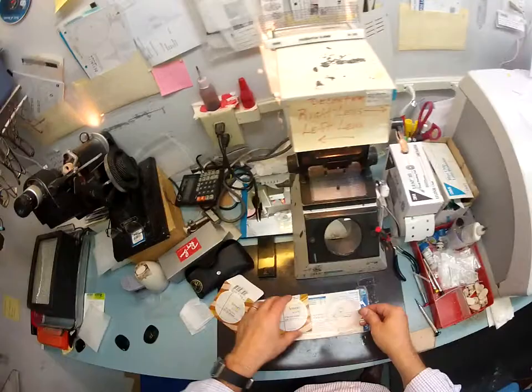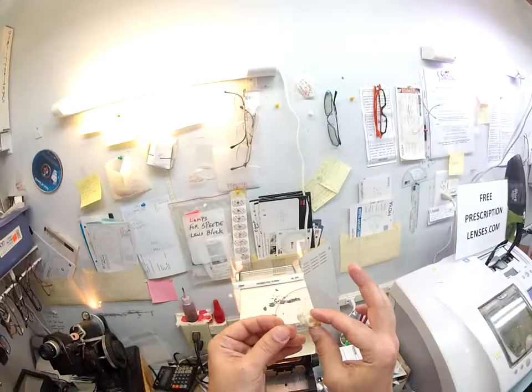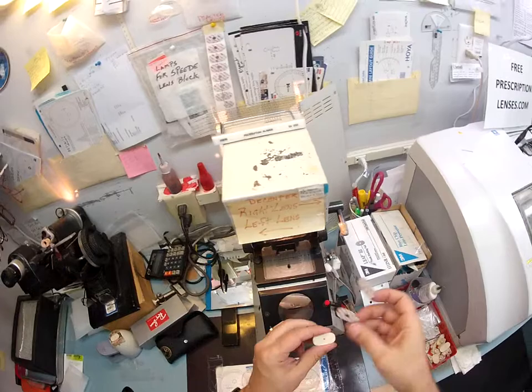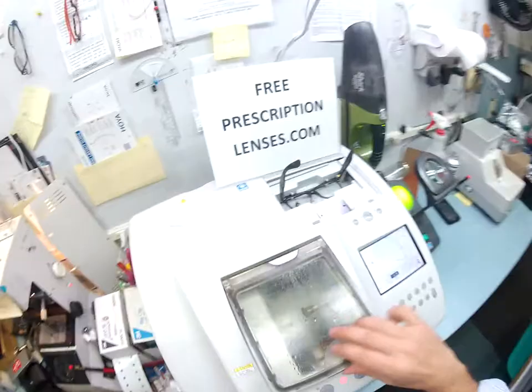But these are your lenses. Let me take them out of the protective packets. That green hue is the anti-glare coating. Now I need to put a block on here which holds it into place in the lathe while it is cutting, so I'm going to use my little 3M pads for that. The black side is the sticky side — I'm going to put it on there, pull the paper away to reveal the double-sided sticky pad. Get another block, put that on there, pull away the tape.